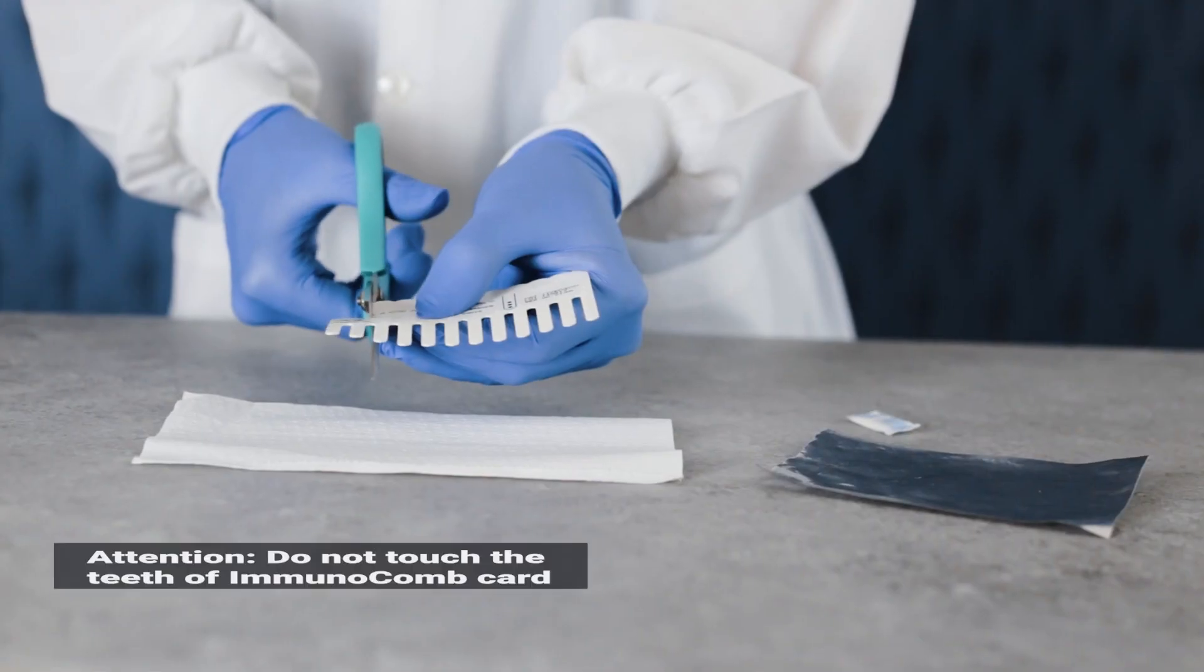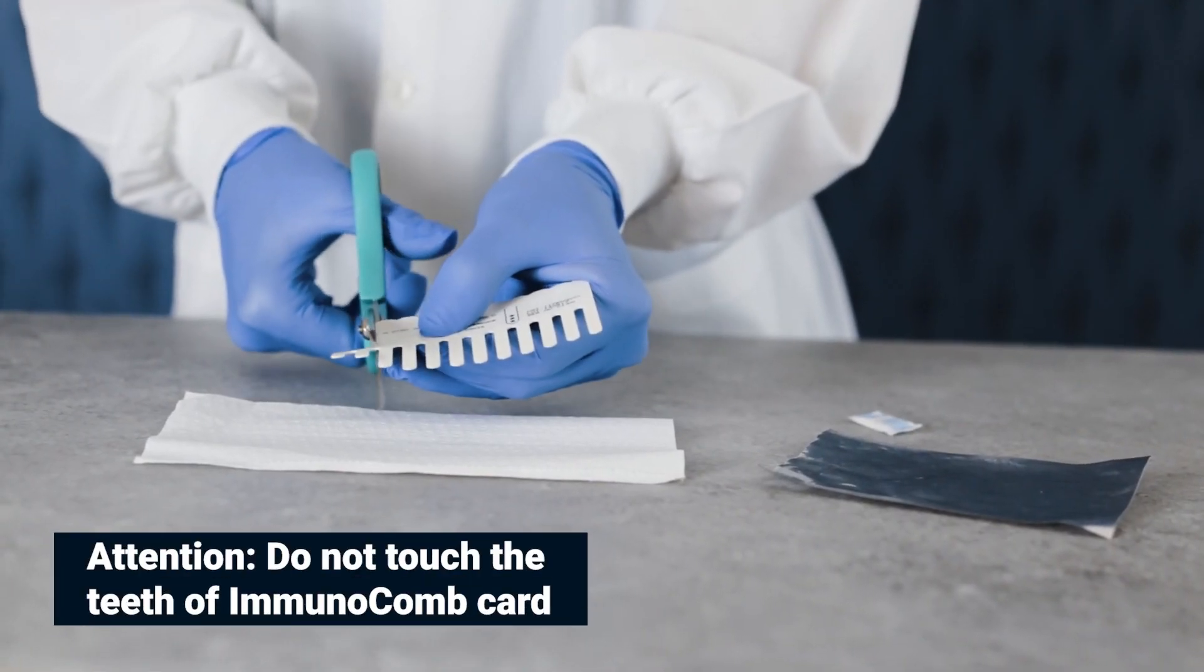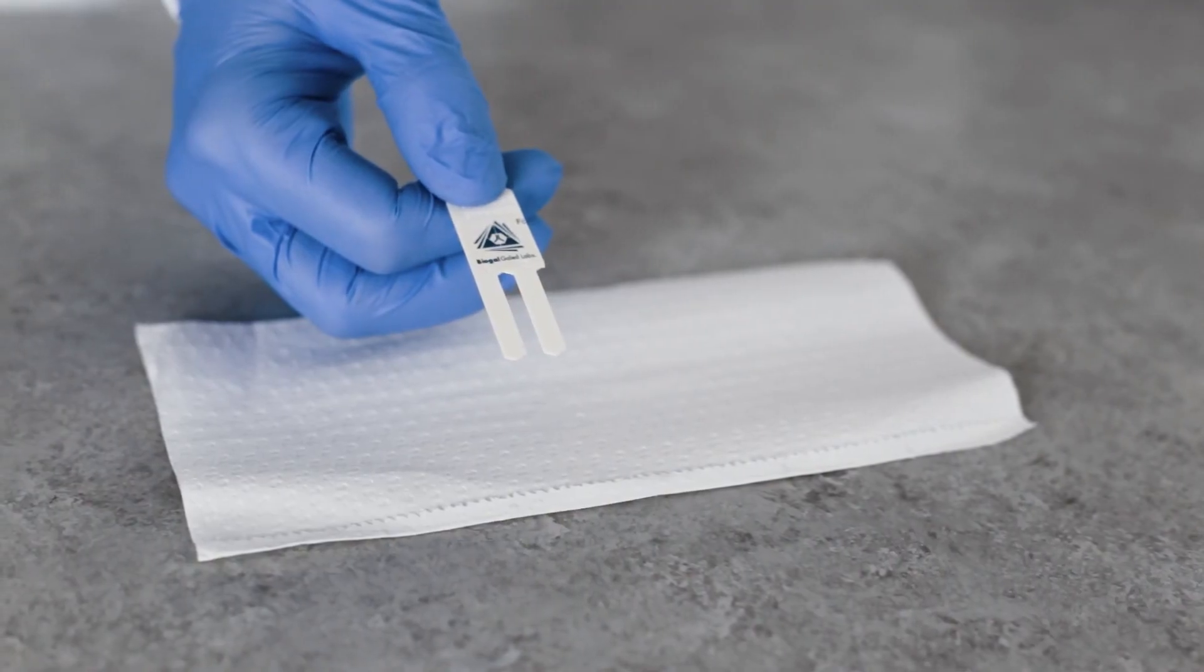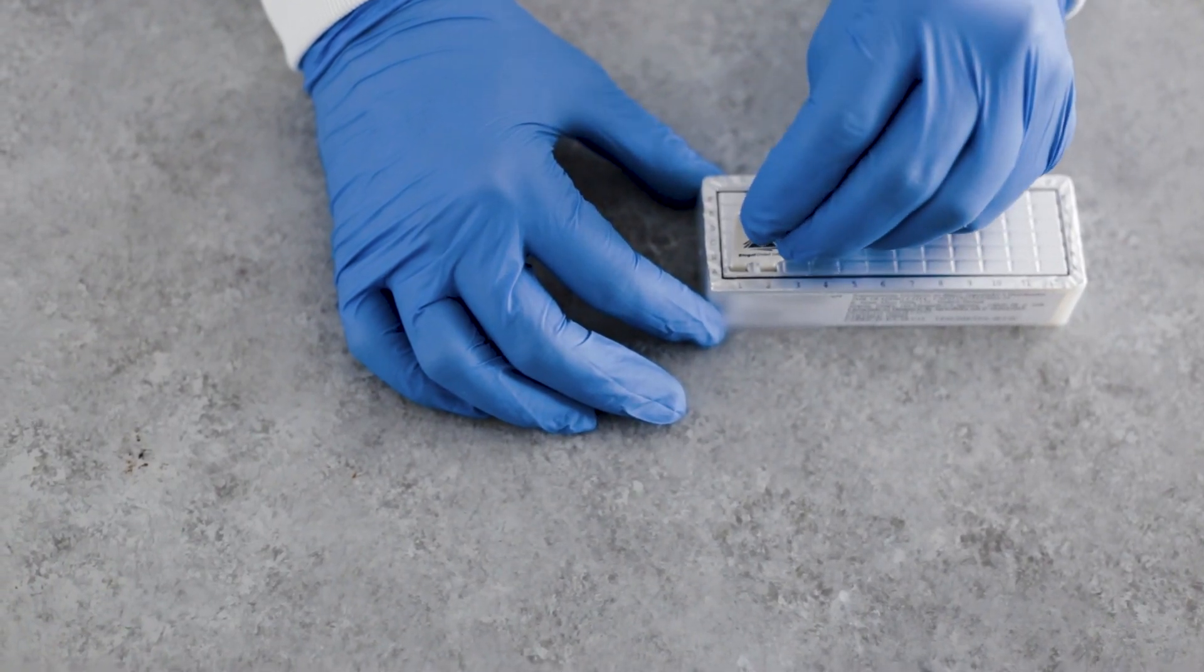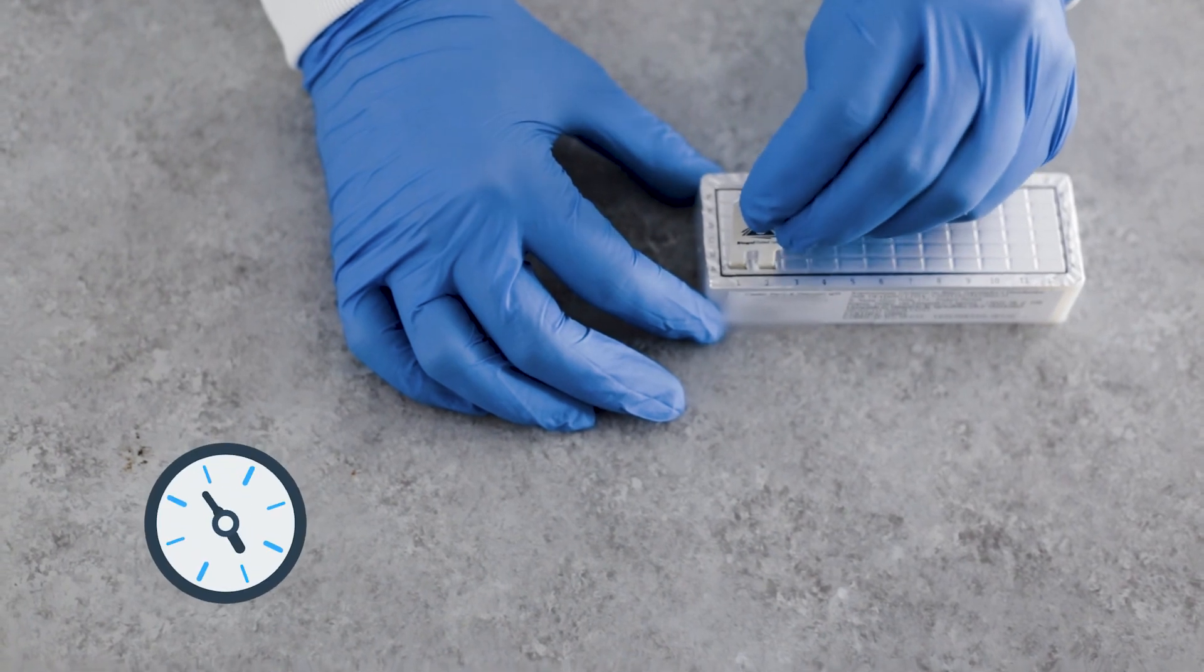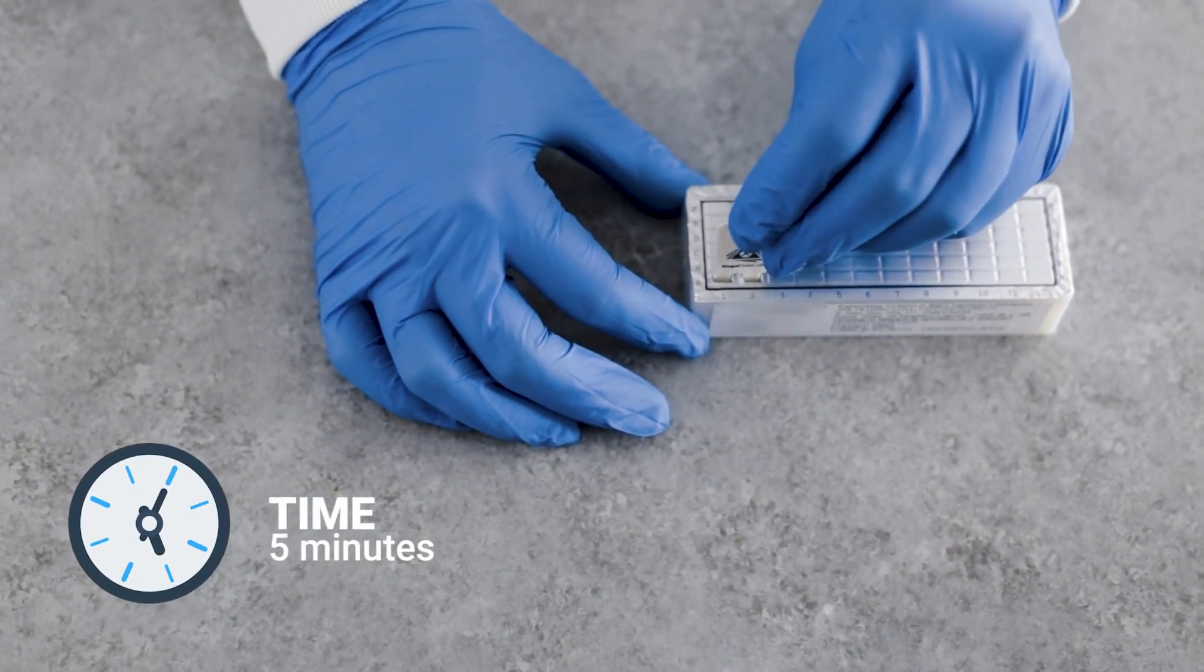Remove the comb from its protective envelope. Insert the comb into the open wells in row A with the printed side facing you, and incubate for 5 minutes.